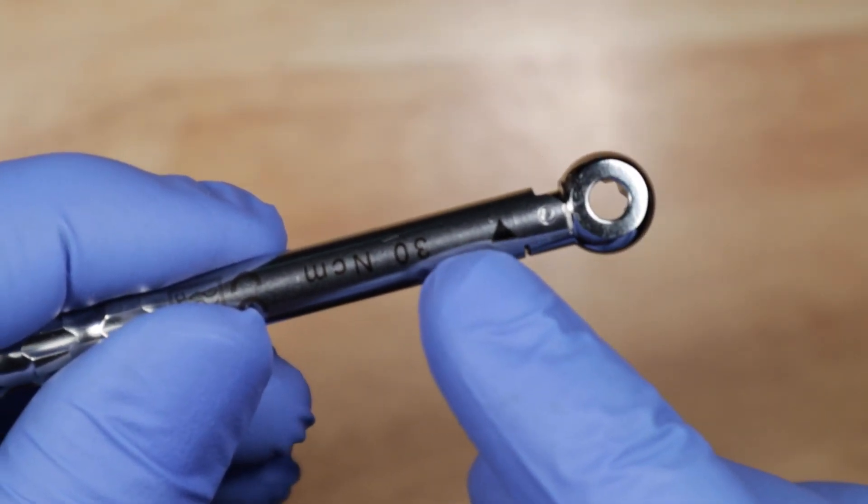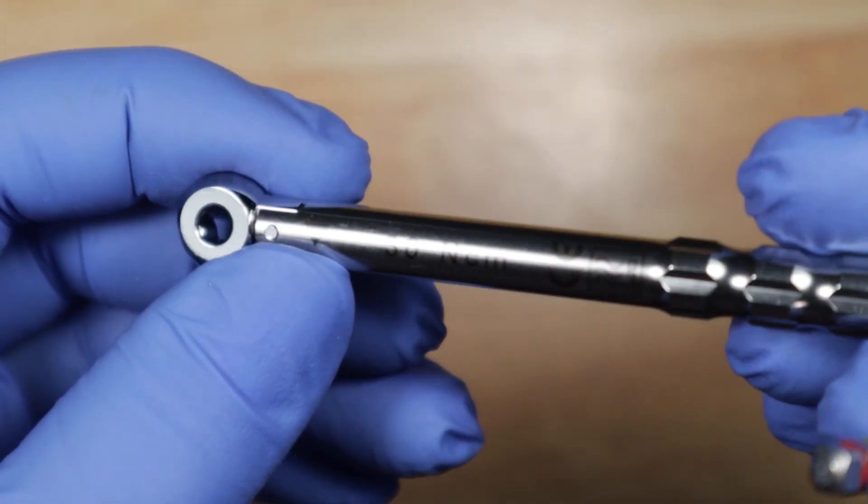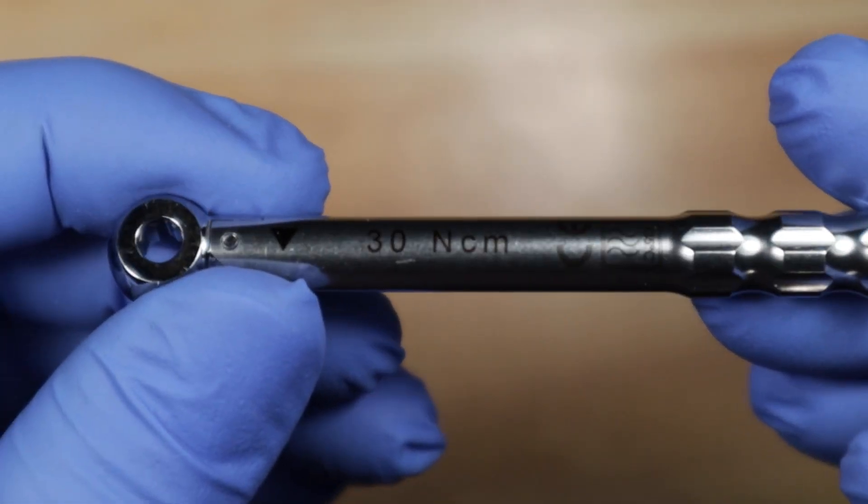You go the way that the arrow indicates and the setting is written right here, 30 newton centimeters. Cool.